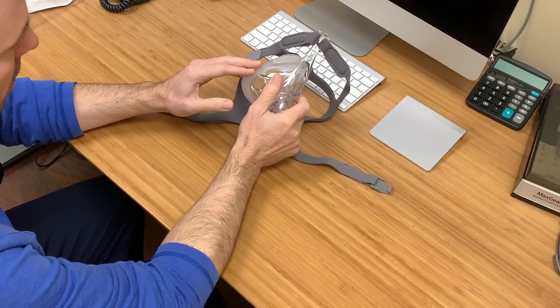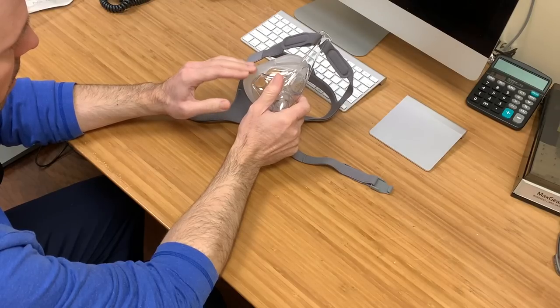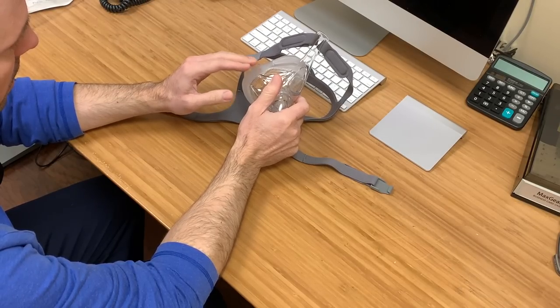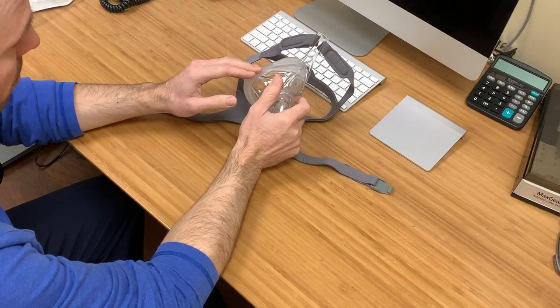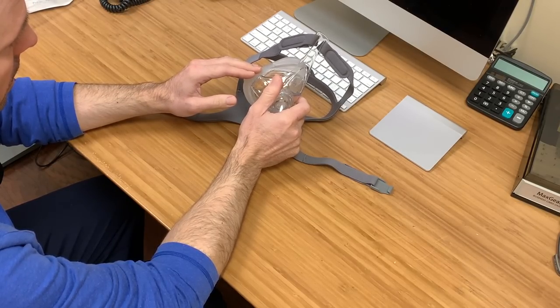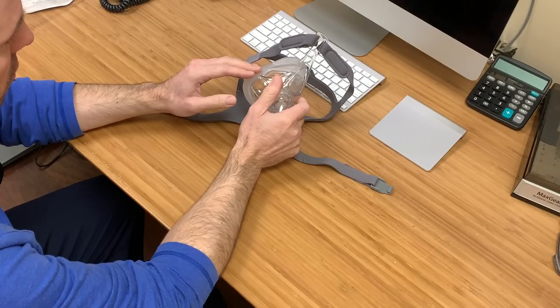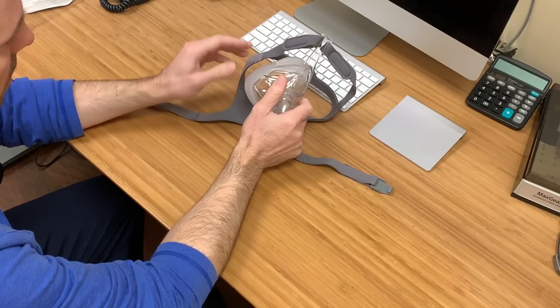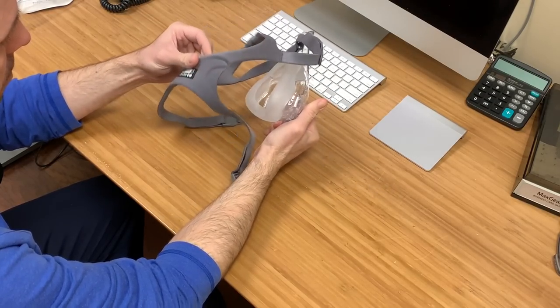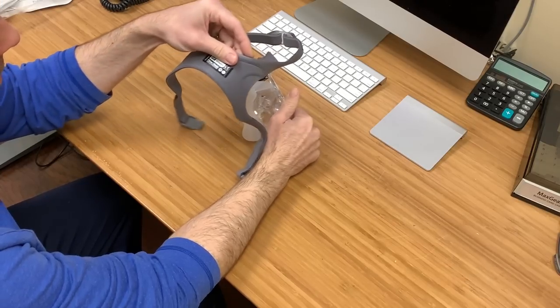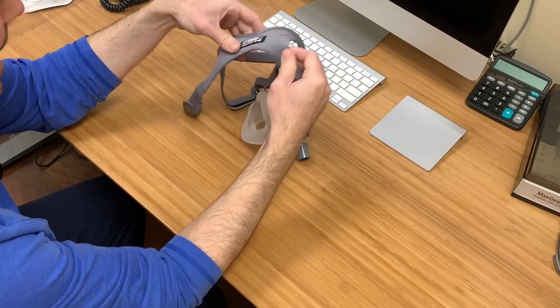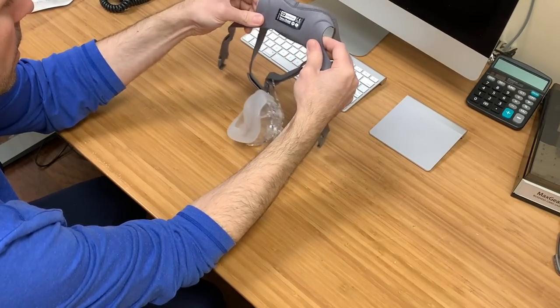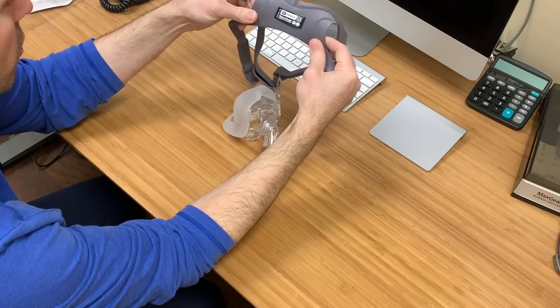First is the price point. Compared to other brands, this is a lot cheaper than those brands. And the other thing I'm going to point out is that the headgear that comes with it is more durable.